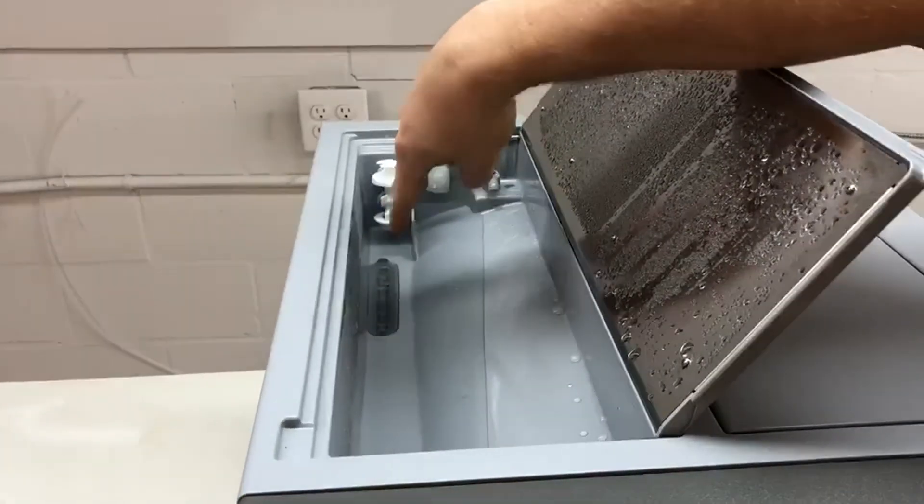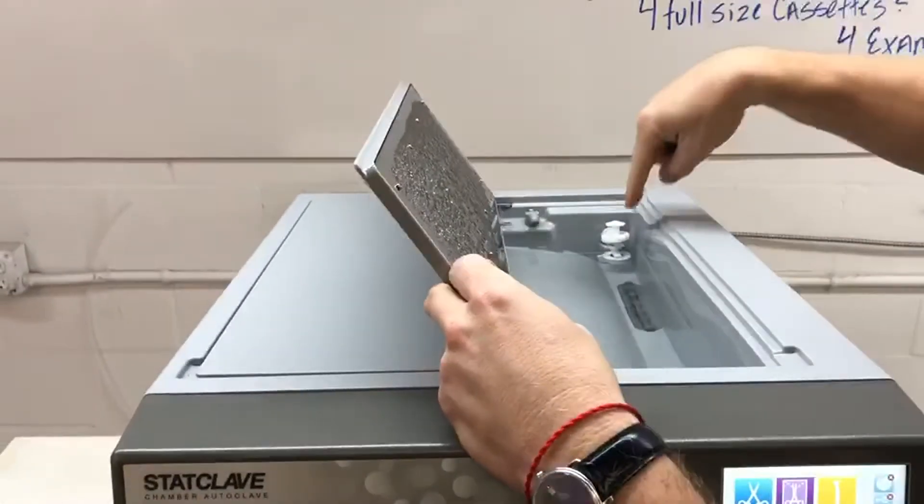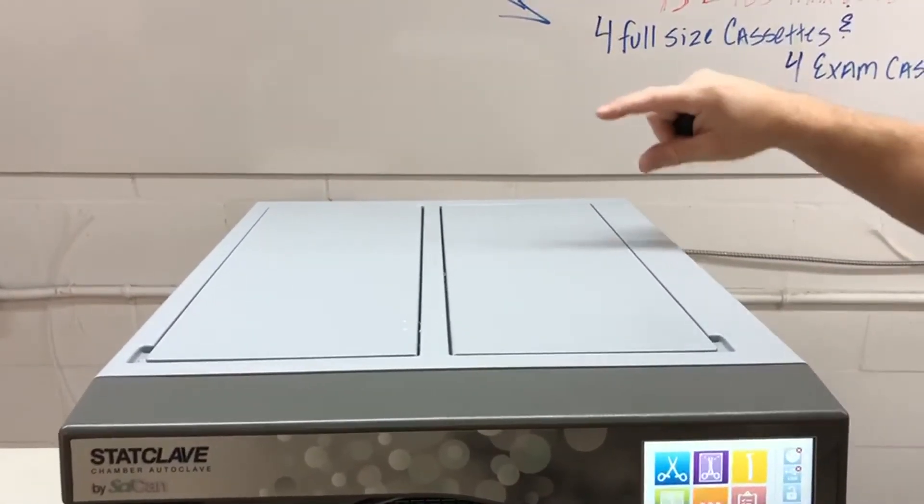These filters in here are for cleaning monthly. There's one in there. There's one in here. Again, we want clearance above here, two inches around here.